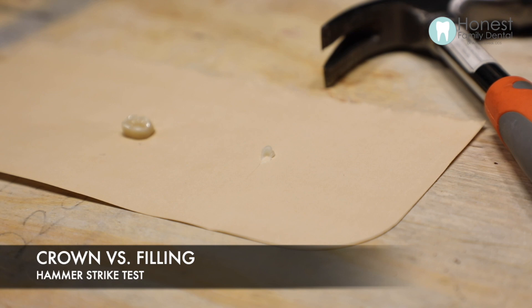In this video we're going to demonstrate the difference in compressive strength between a ceramic crown and a ceramic filling. One of the main questions I get from patients is: why can't we just fill it, and why are you recommending a crown? This is why — a filling can only withstand 33% of the overall surface area of compressive force, meaning if the chewing surface area compressed is more than 33%, it's not structurally designed for that. This will demonstrate exactly how that plays out.